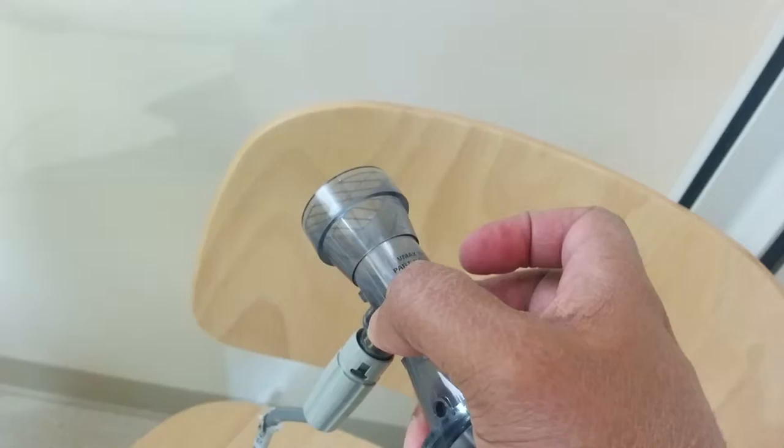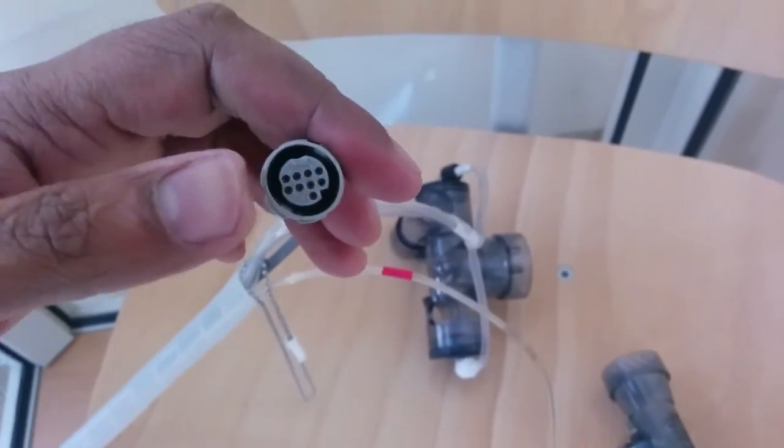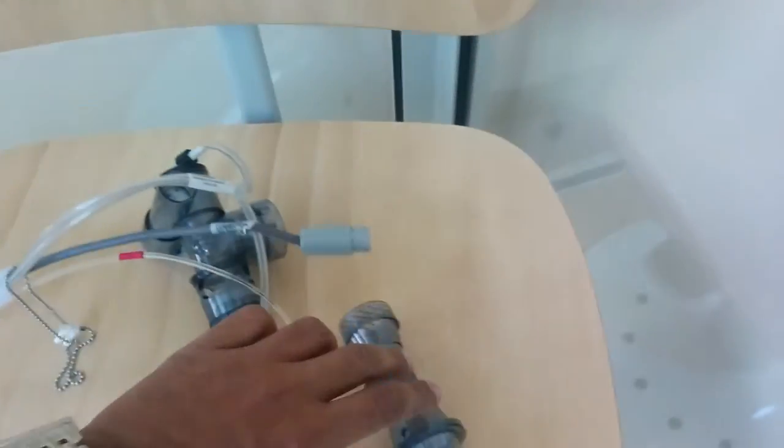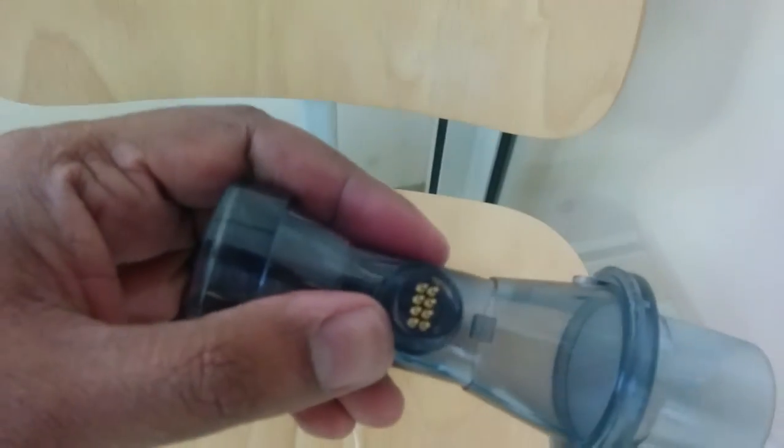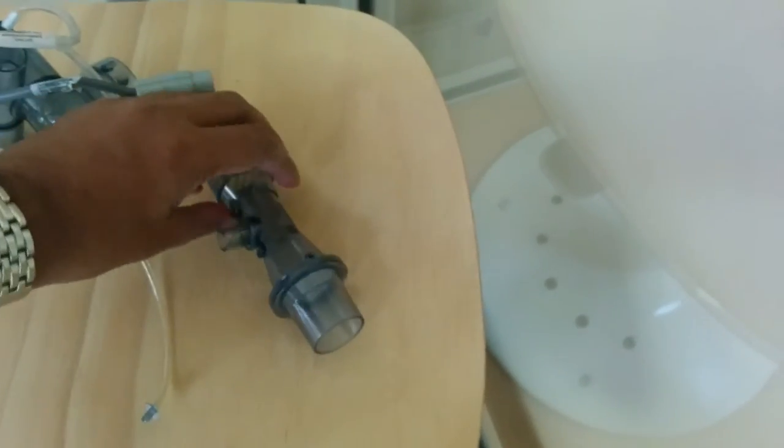There are these grooves that go into these things. The flow sensor also has a groove. You see that? It has to go into the right ports. You have to make sure that happens.